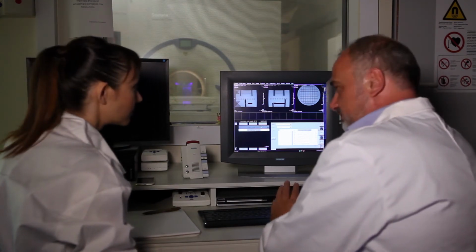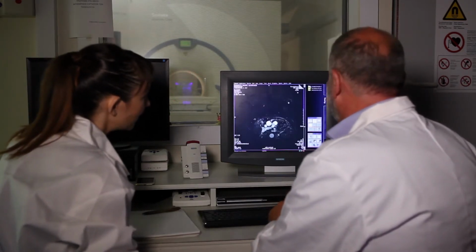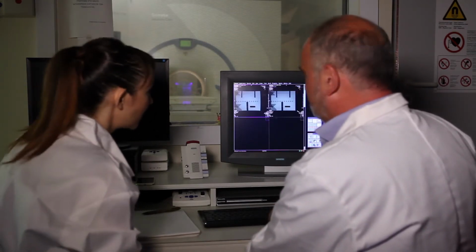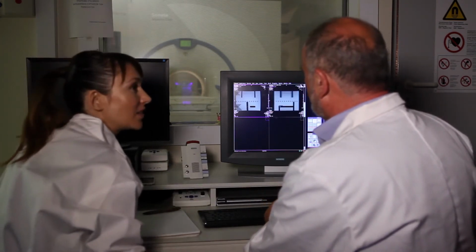There is a drawback here. Let's see the new ones. You can see it from here. I'm going to go to this, and I'm going to show you the image. You see the difference here. The image is corrected. It looks correct. So, can we use the second one for localization?